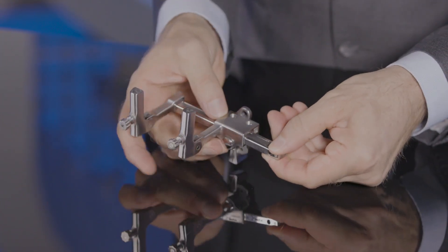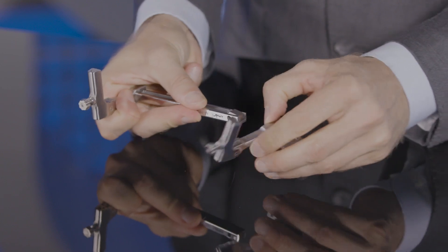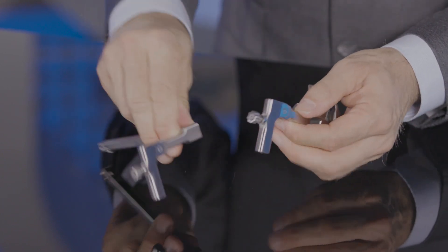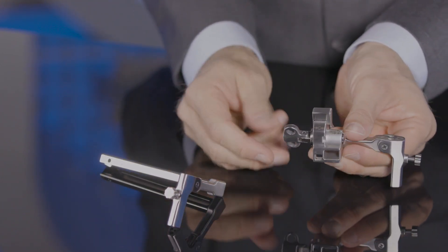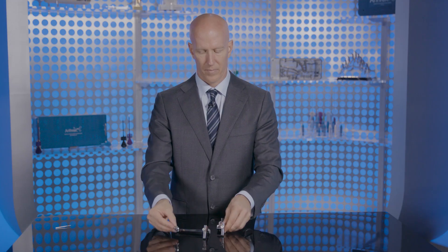The distractor can easily be taken apart in three pieces for cleaning. We have a small button here that when depressed, this arm is removed over top, and then this key is removed. Now the distractor is in three pieces for easy cleaning.